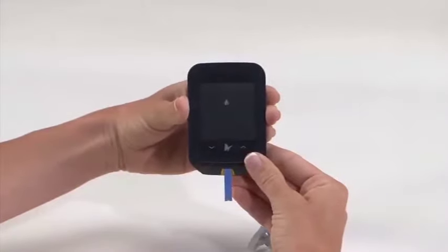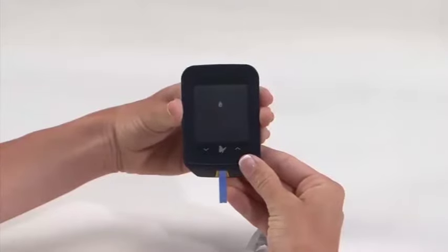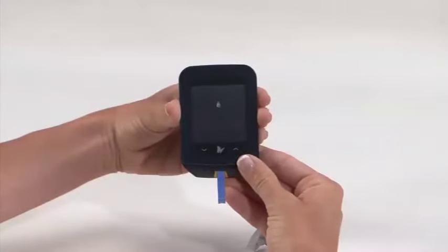The Apply Blood icon will blink, indicating that the meter is ready for you to apply a sample to the test strip. Next, select your preferred test site.